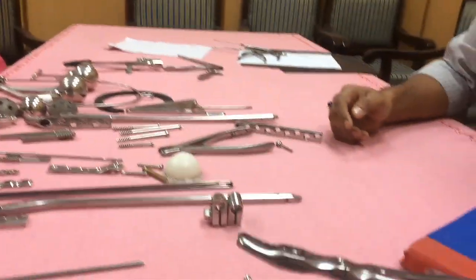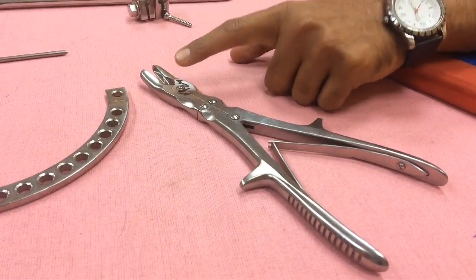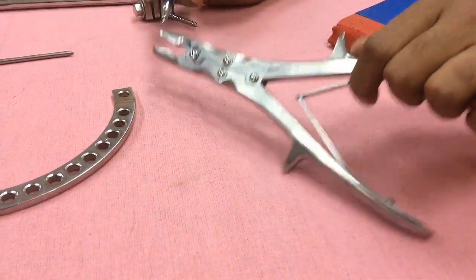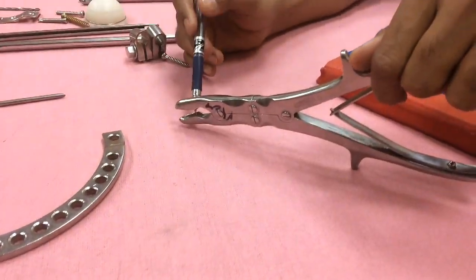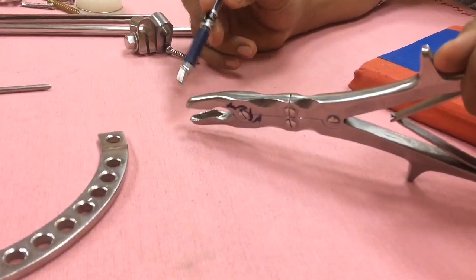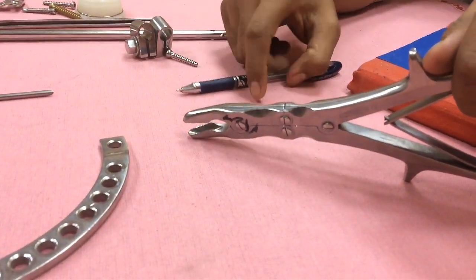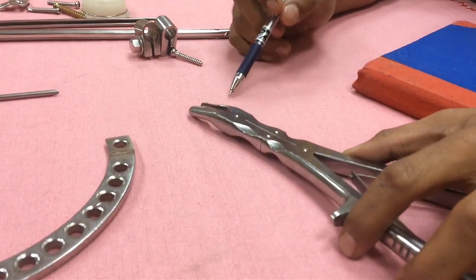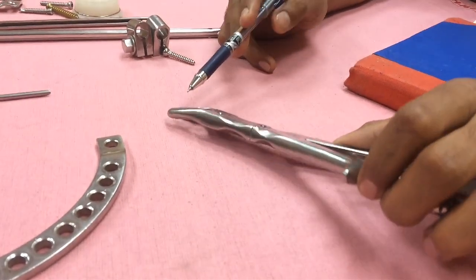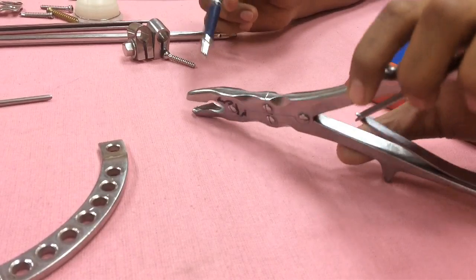This is a bone nibbler. Its identifying feature is that it has hollows in its front, which are used to grab the bone being nibbled. This is how you differentiate it from a bone cutter — the bone cutter has sharp front ends, whereas the bone nibbler does not.